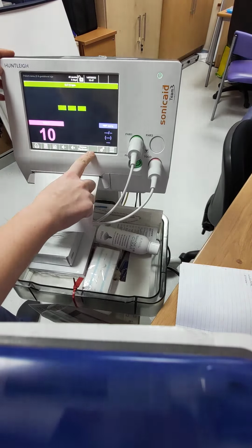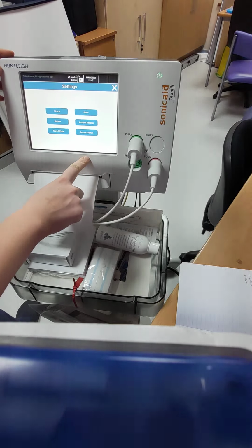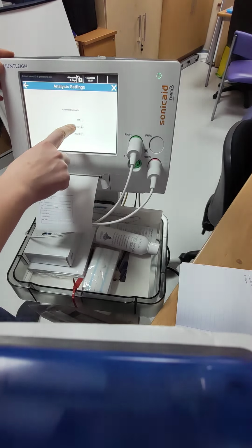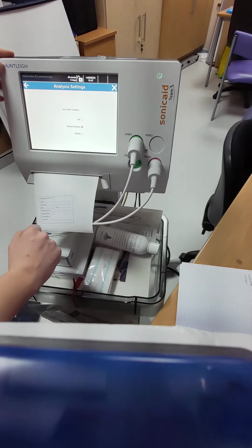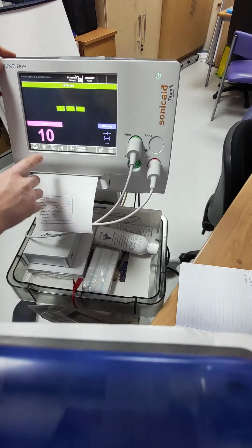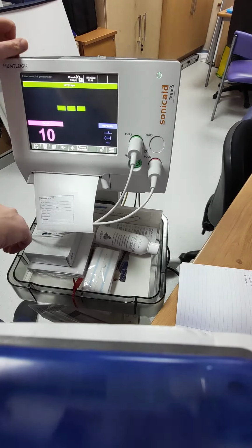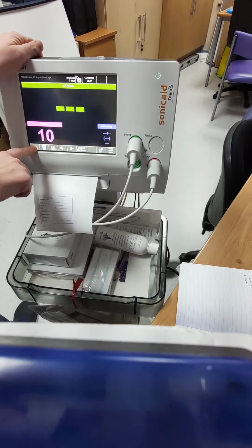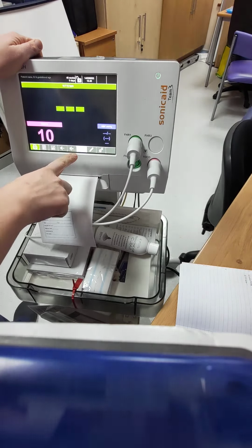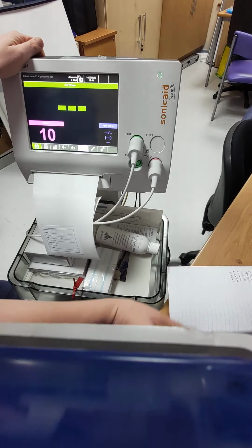And then in order to set up your Dawes-Redman, you can see it's already down here. So if it's not set up already, then you can press the 2 little cogs, that's the settings, click on analysis settings, and as you can see it might be off, and then you just click Dawes-Redman there, and then that would be set up ready to go. It's important to do that before you press your print button, otherwise you can't do it retrospectively, you'd have to turn it off and restart it again. So to print, hold that one down, and then as you can see it will print off. You can see here that the Dawes-Redman is set up and it's nice and purple.